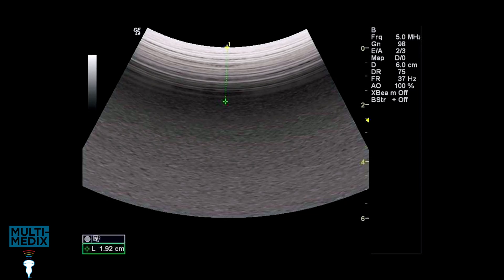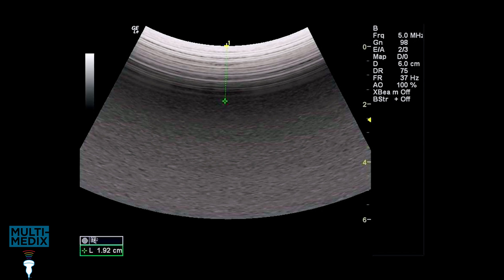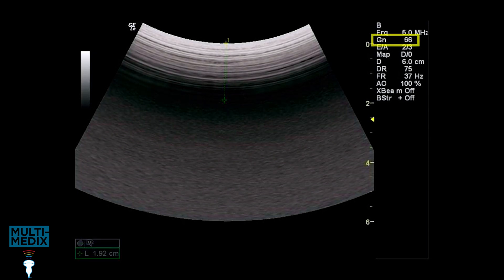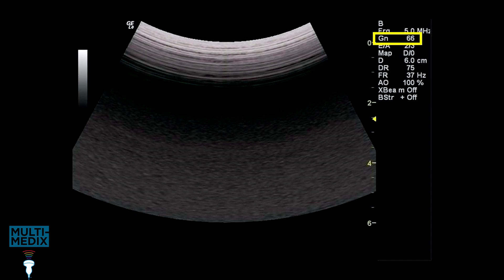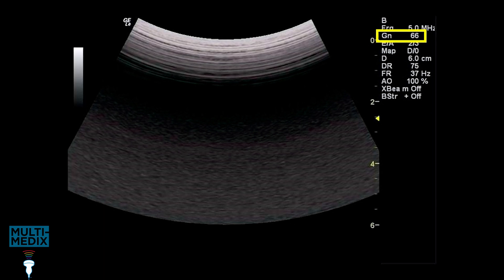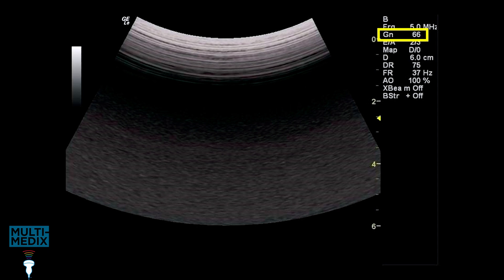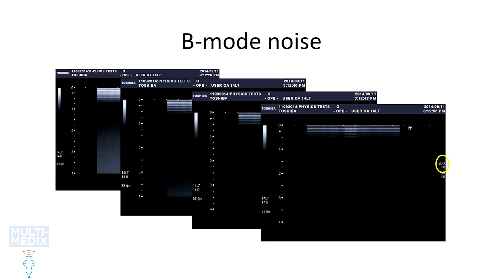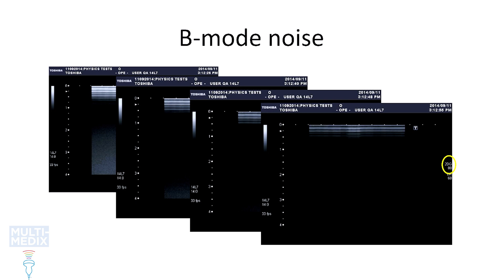Having got the settings, we can now do some measurements. The sensitivity assessment is in two parts. A vertical measurement from the probe surface to the deepest visible reverberation line in the middle third of the image — the tolerance is half the distance to the adjacent reverberation plane. For the second part, the overall gain is turned down to the point where the deepest reverberation line disappears; I call this the reverberation threshold. There's also a noise threshold measurement where overall gain is adjusted to the point where all noise in the distal image disappears. I tend to repeat both of these until I'm confident I have the correct value. These threshold gains should be recorded with tolerances of plus or minus four gain increments.